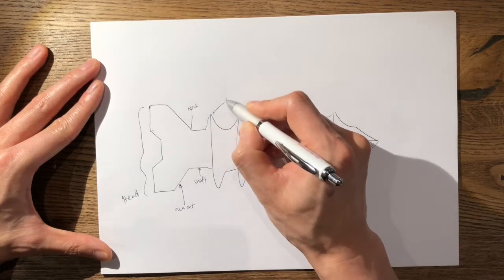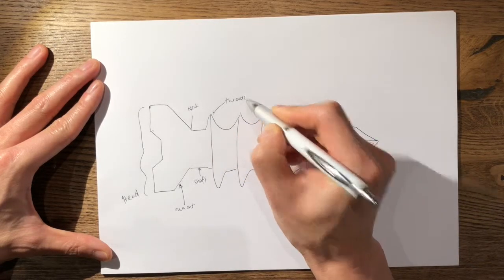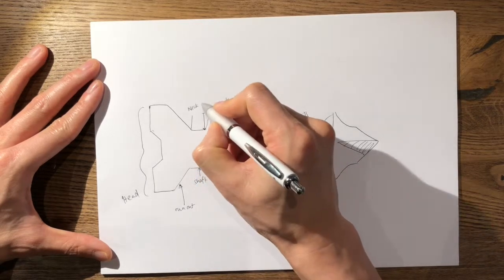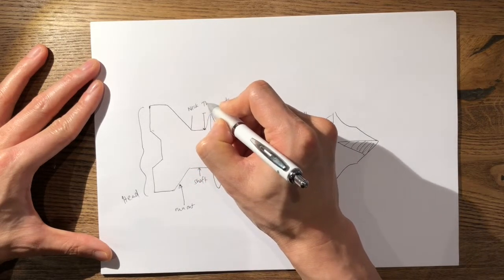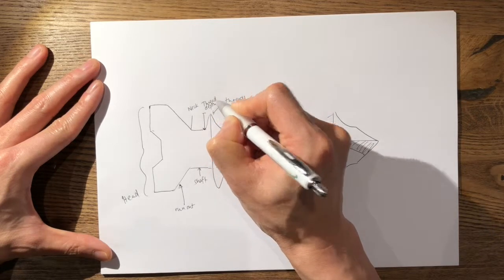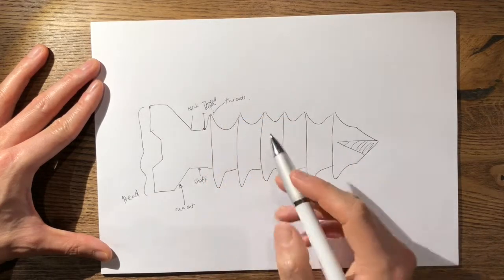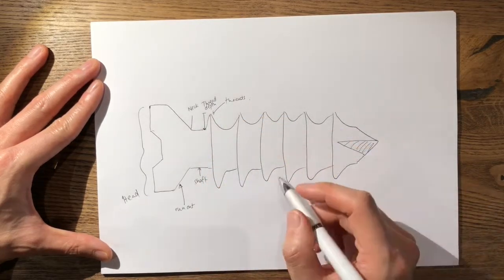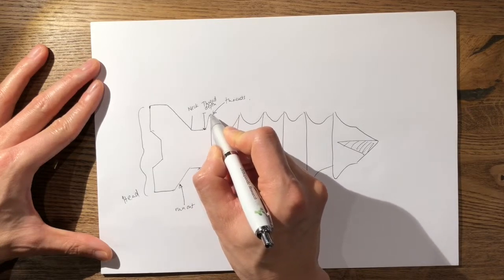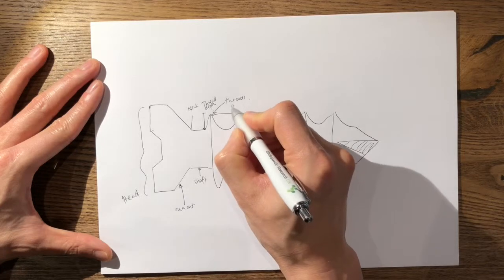These are the threads, and here you have the thread depth. The thread depth is the effective purchase that the screw achieves into the bone. This distance between the two threads is termed the pitch.